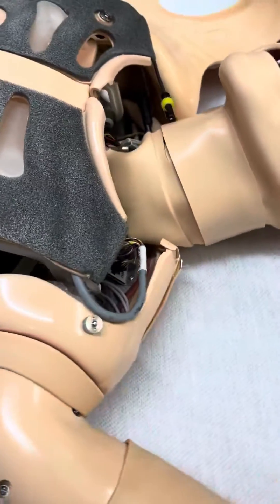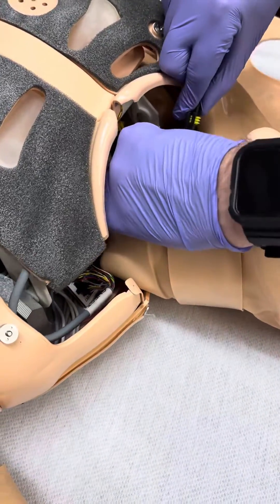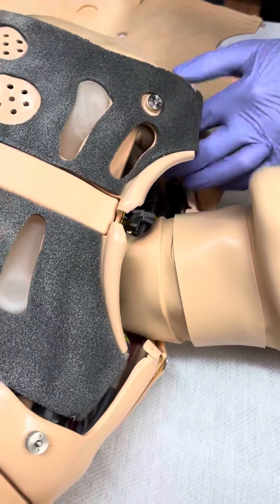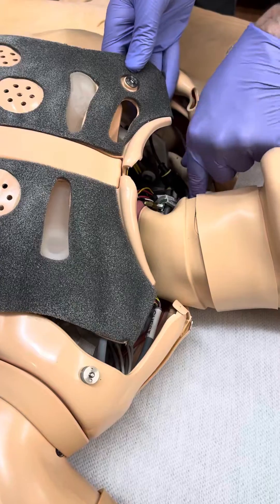The wires can be a loose connection sometimes. We're going to put the defibrillation cable back on — slide it on, there's quite a bit of pressure and it snaps into place. Make sure the defib cable is not interfering with the CPR spring.